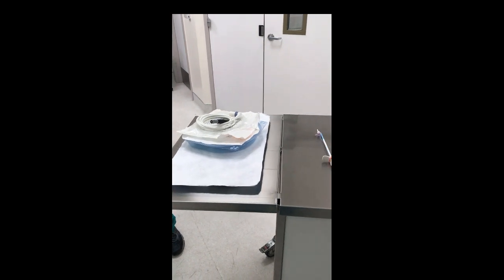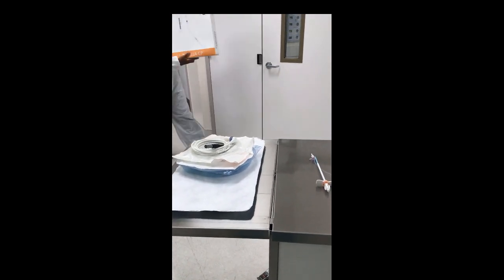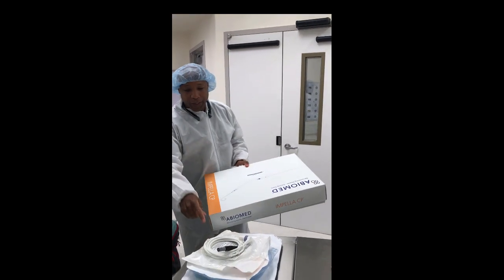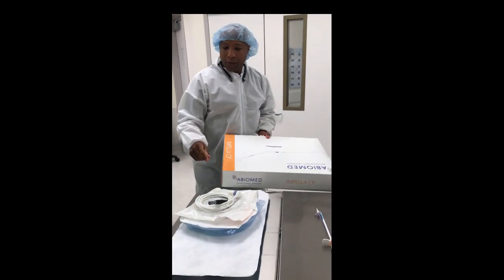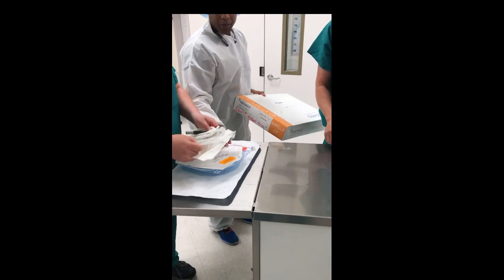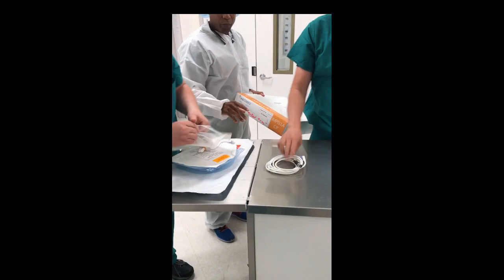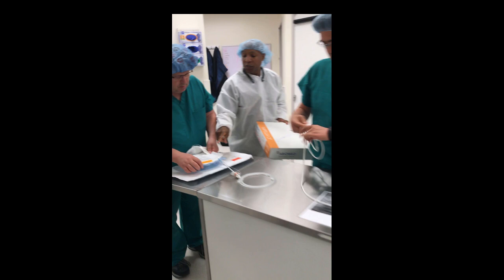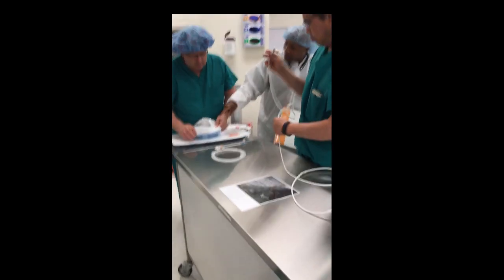I'll open this box. These are the components in the box — this is going to come sterile. Can you hand that onto the sterile field please? This part is not sterile; this part is sterile. So this goes on the sterile field. Now with this portion here, I'd like to open this up.